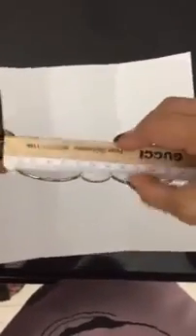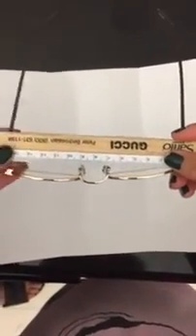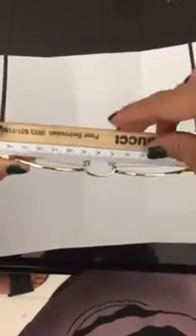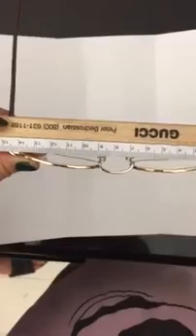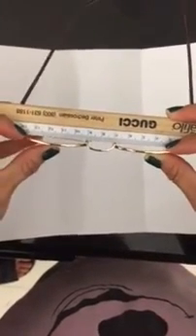So again, the 4-point touch, you grab your ruler and you can see right here, I'm going to show you this way, that you can see that it is touching on both sides, and you would actually be able to see the difference in the distance between this bridge and this part of the bridge to ensure that there's equal amount of space. This also signifies and lets us see how much face form is on the frame.